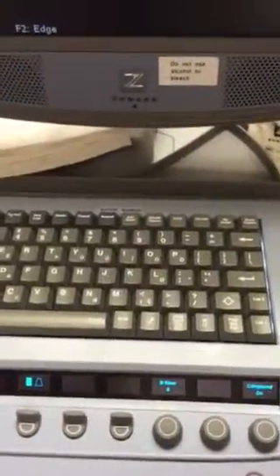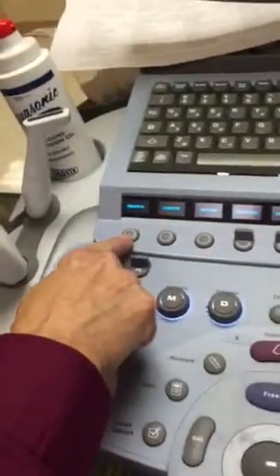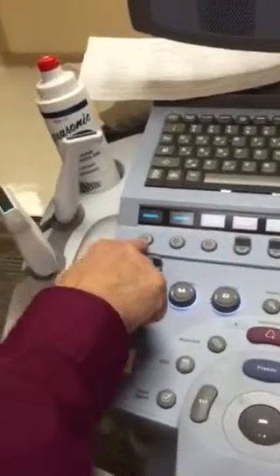Now let's say we want to go to carotid again. We just hit carotid, and then we want to go back to arterial. That one was for the arm, so that would be to place a line. No, I want lower extremity. I set that up as femoral. Do you want it as femoral, or do you want me to change that to say lower extremity? I'll change that for you. It'll be right there.